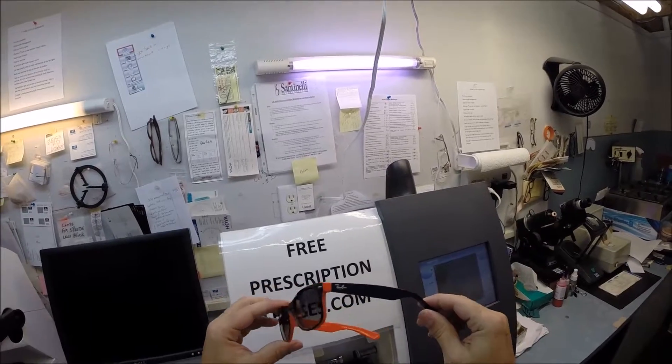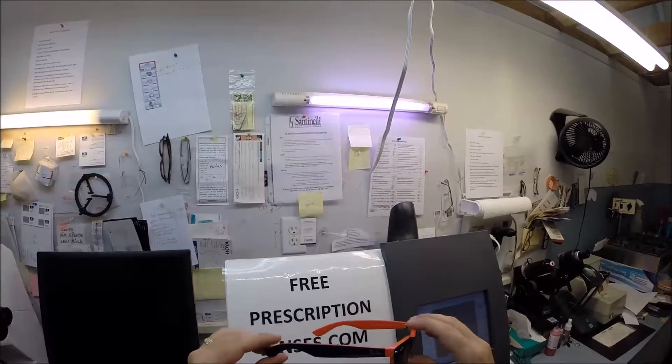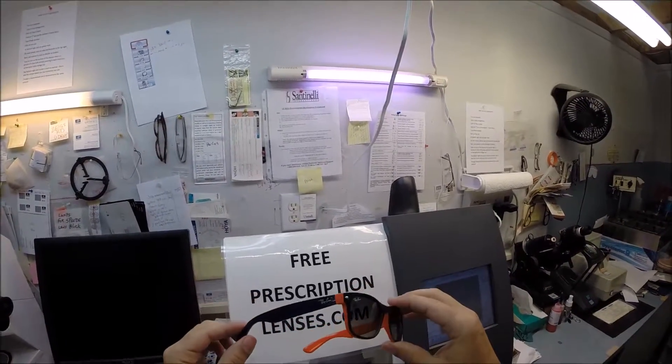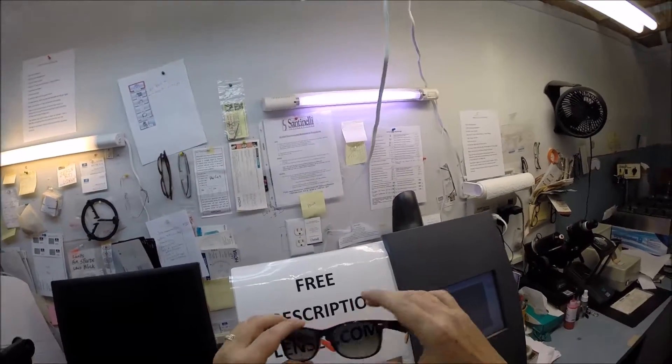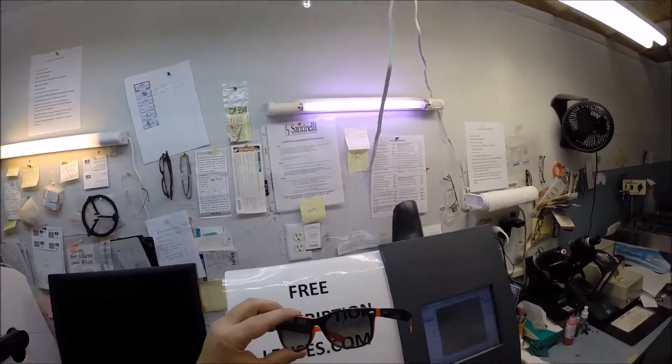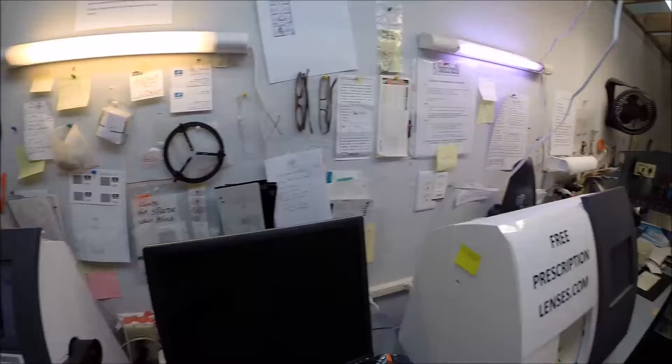You have color 811 which is the blue rubber, but I'm going to be demonstrating on color 789. Since your lenses are being shipped to Chicago, I'm going to use the Chicago Bears color that this Ray-Ban comes in.